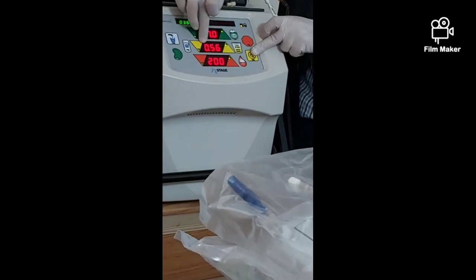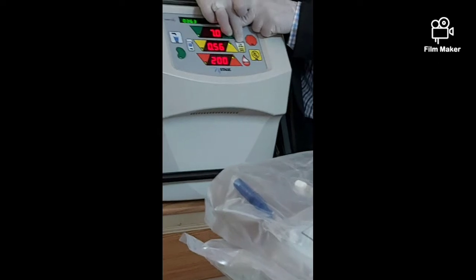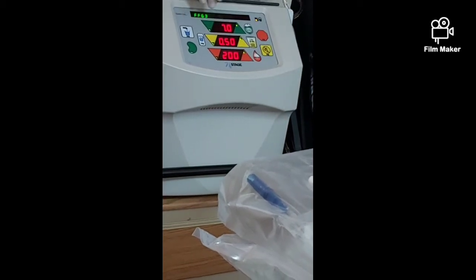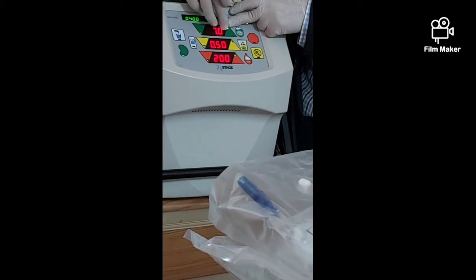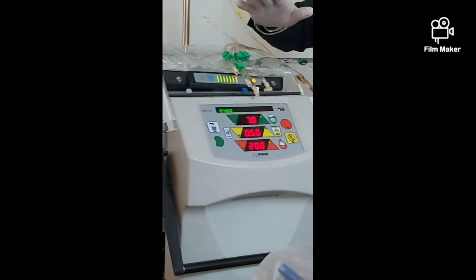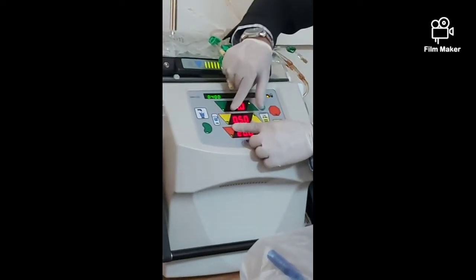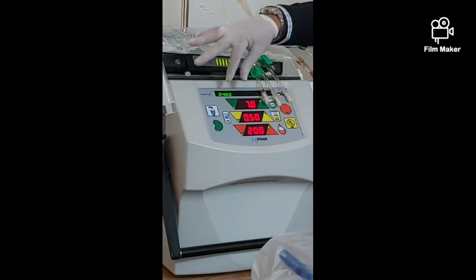Just reduce the rate per hour. Right now this means 0.56 per hour we are removing. If the BP is low, just reduce this — make it 0.4, 0.3, like that. And don't forget the time, because we already fixed the time with the dialysate — it's showing 5. Don't worry, after this finishes you can finish. We are only concerned with correcting the BP.